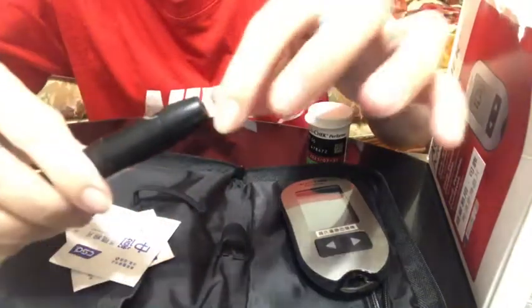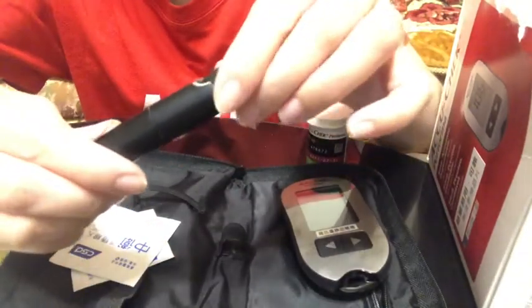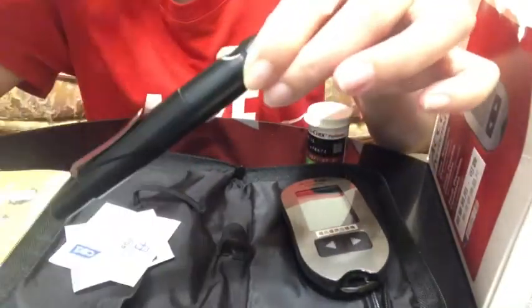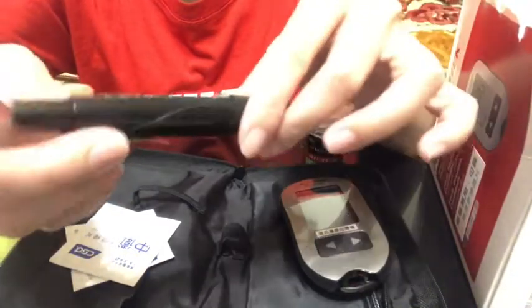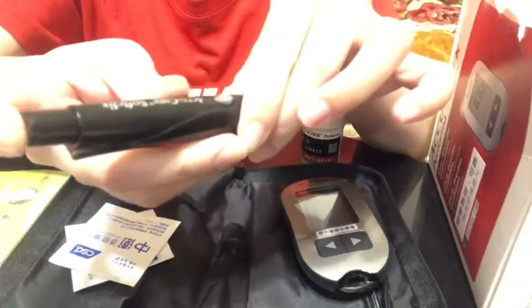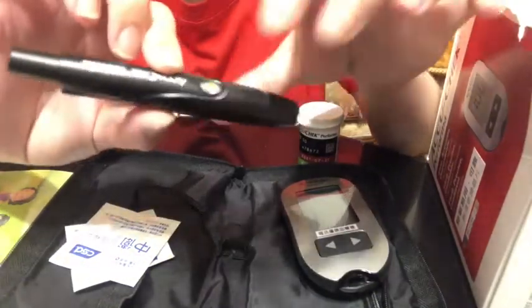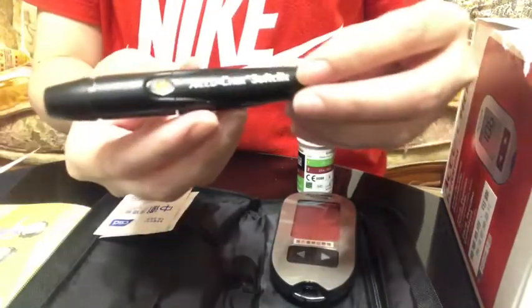Be sure to line the notch to the cap — line them up. Then set the penetration depth. Start with select two. The larger the number, the greater the penetration depth. Then press or push the plunger. As you can see, this button becomes yellow — it means your lancing device is ready to use.